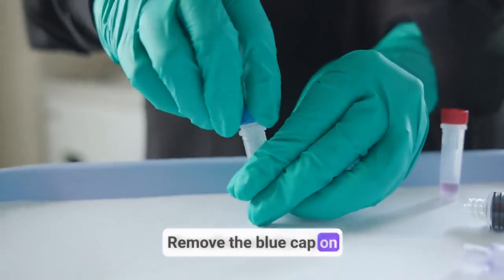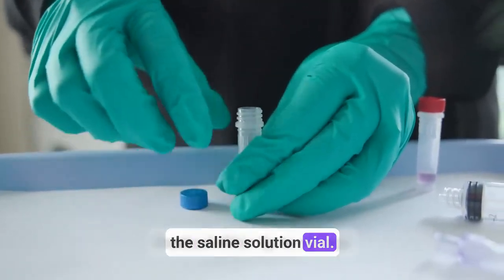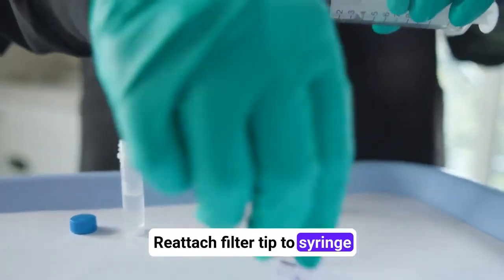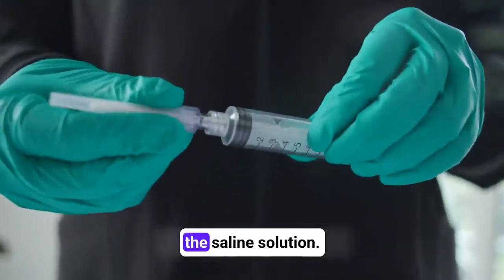Remove the blue cap on the saline solution vial. Reattach filter tip to syringe and place the filter tip into the saline solution.